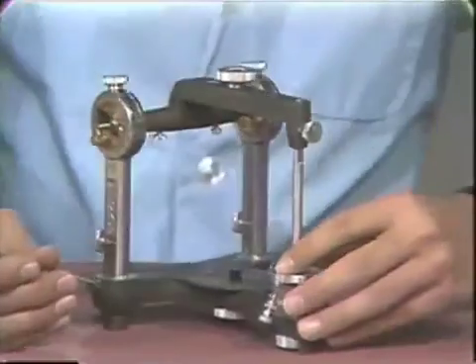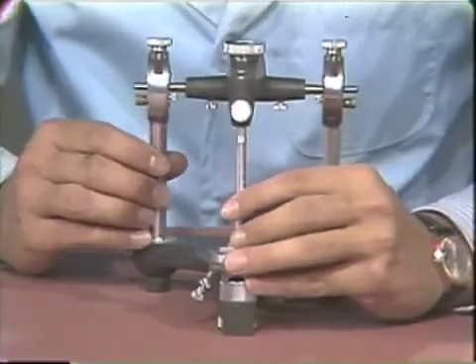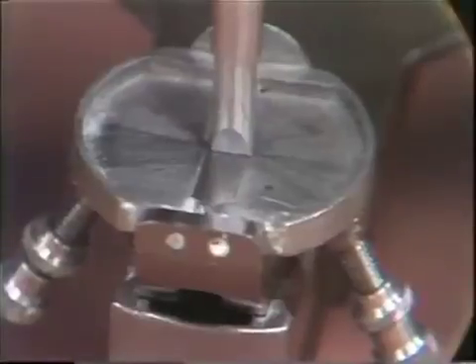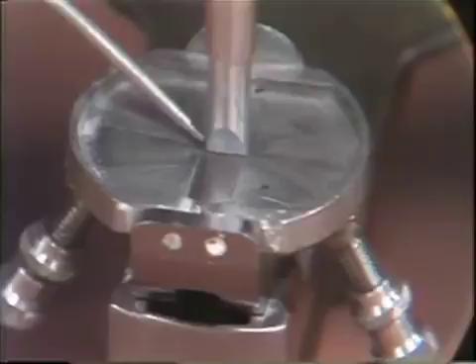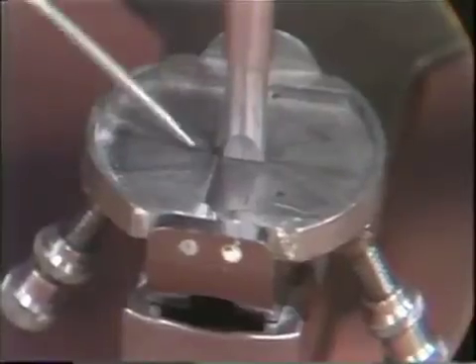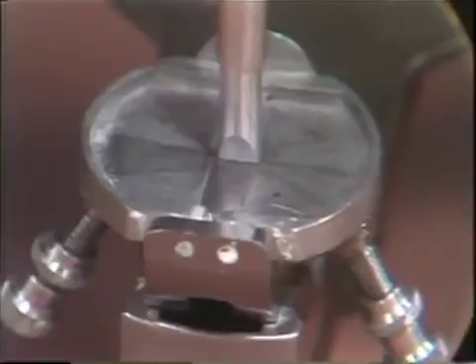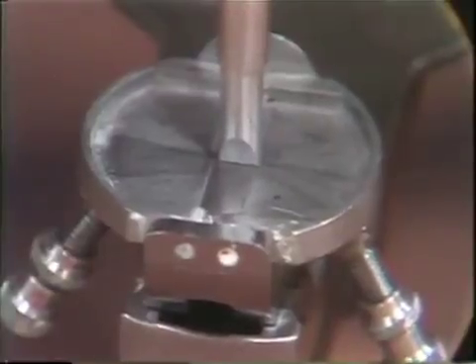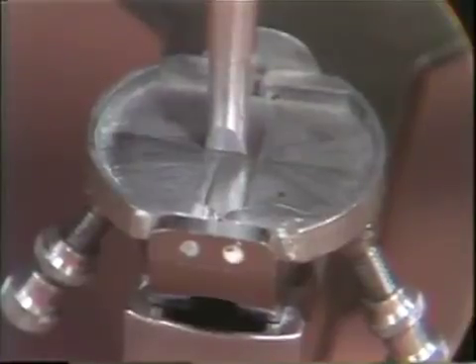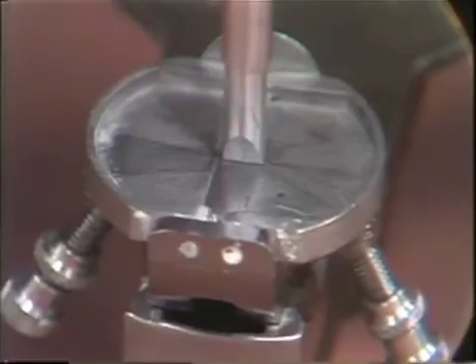This must be achieved bilaterally in both condylar areas. Looking at the incisal pin area, the blade of the incisal pin now indicates it is in a more correct antero-posterior position. Laterally, it need not yet be in the correct position if the horizontal axis shaft has not yet been adjusted. Previously the pin was slightly askewed to the right because the condylar ball was posterior; now, with the condylar ball brought anterior, the blade of the incisal pin moves to a more correct position.